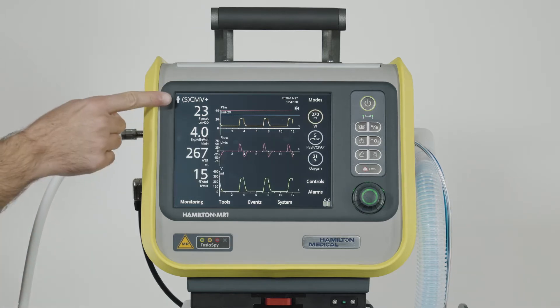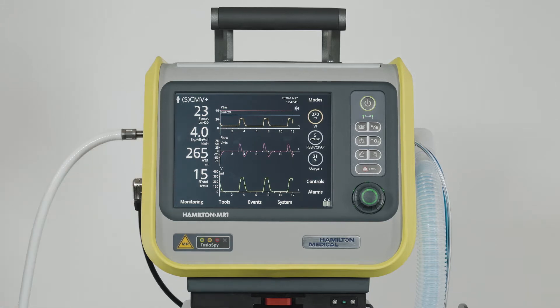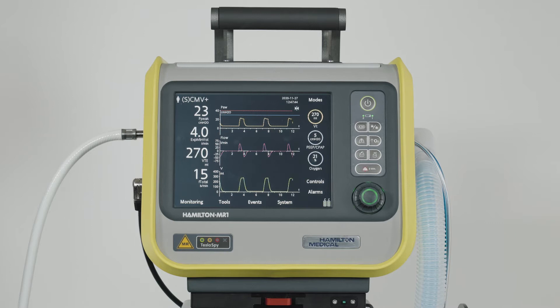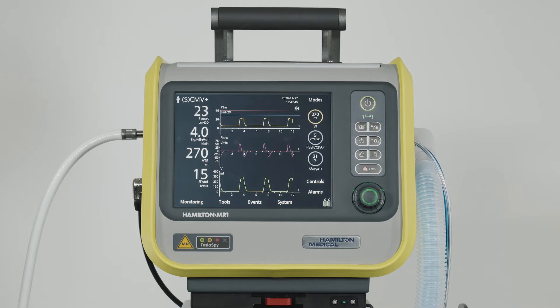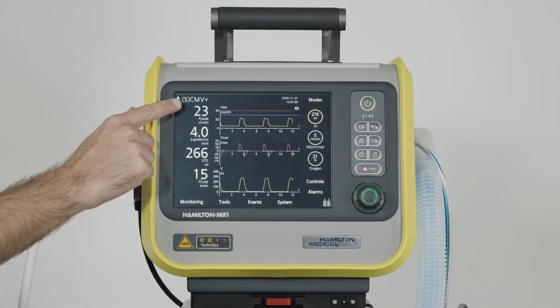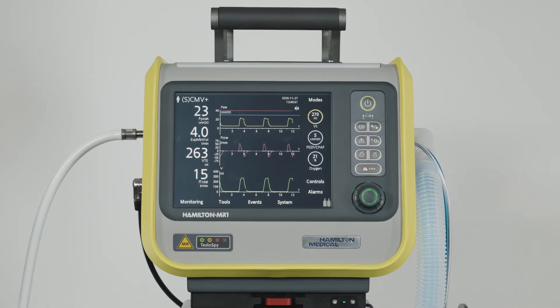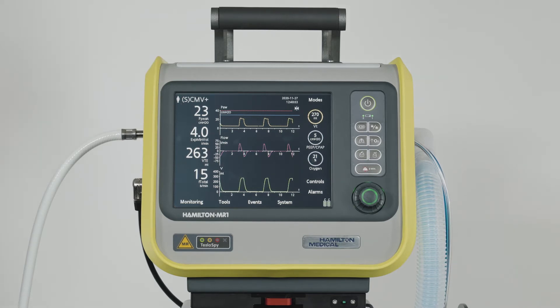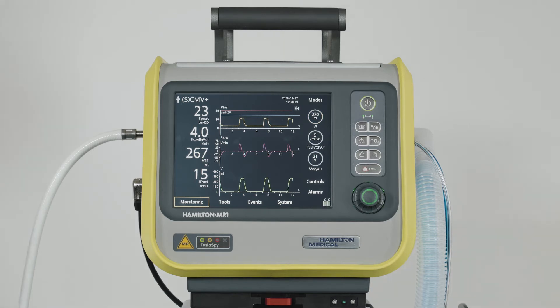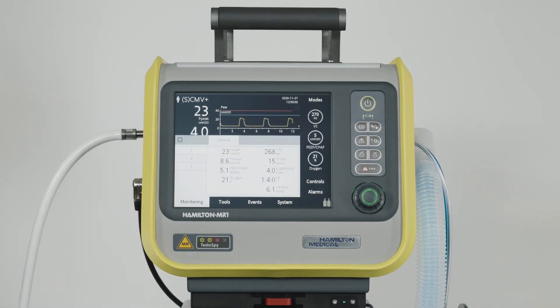On the left, you can see some numerical patient data. These are the four main monitoring parameters, also known as MMPs. Just above the main parameters, you'll find the ventilation mode currently selected, as well as the chosen patient group and gender. To access all other monitoring data, open the monitoring window.